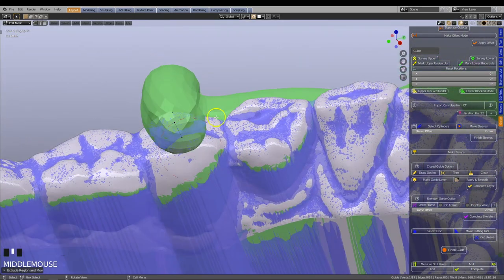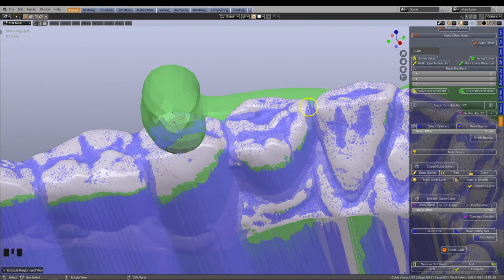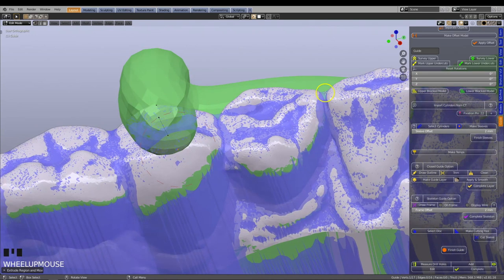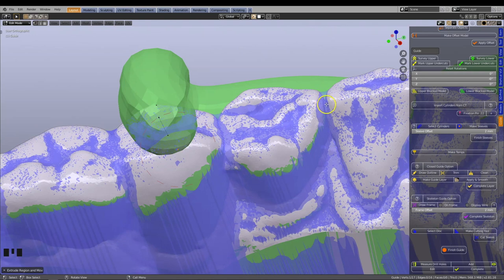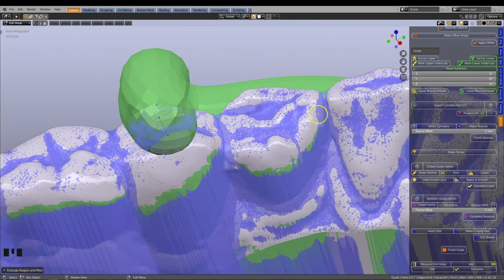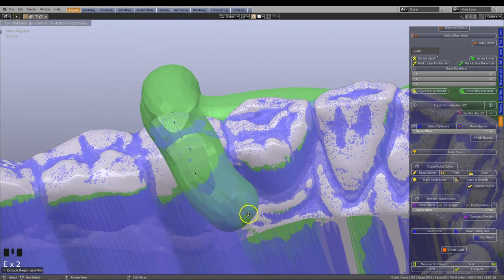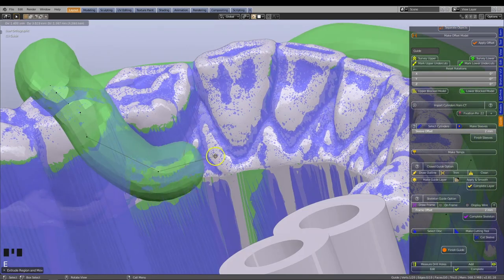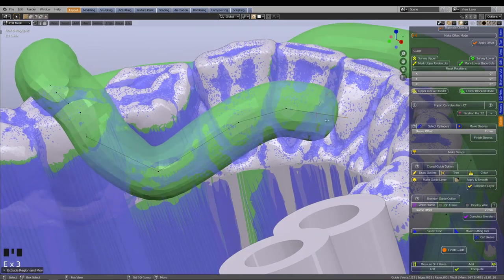We do this to avoid the complex mesh arrangement which makes up the deep crevice of the interproximal embrasure. This also means easier printing of flat surfaces rather than deep embrasures, which may cause obstructions preventing the frame from correctly seating in the mouth.